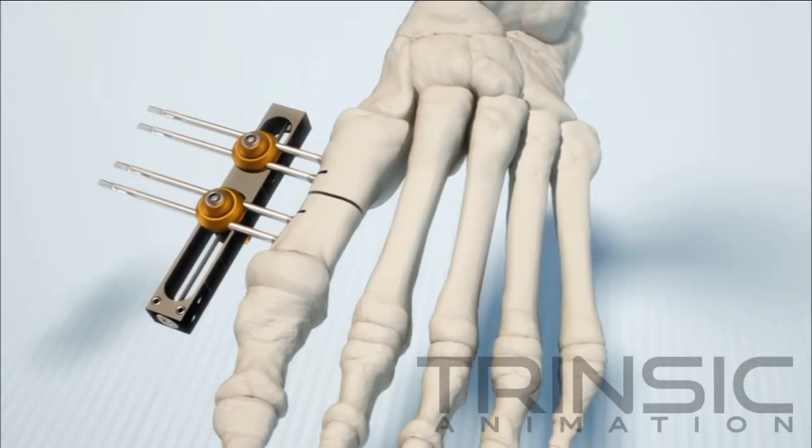Adjust the positioning of each pin using the multi-purpose tool, advancing or retracting as necessary.